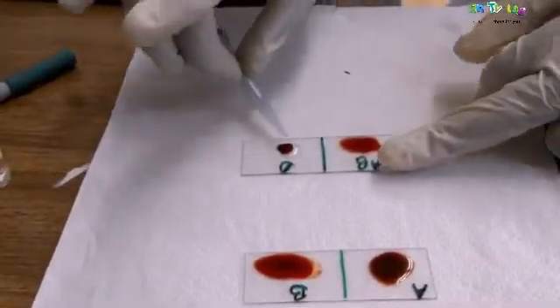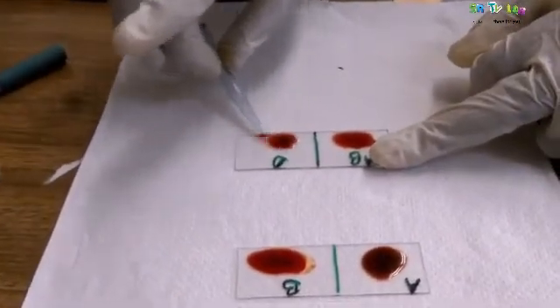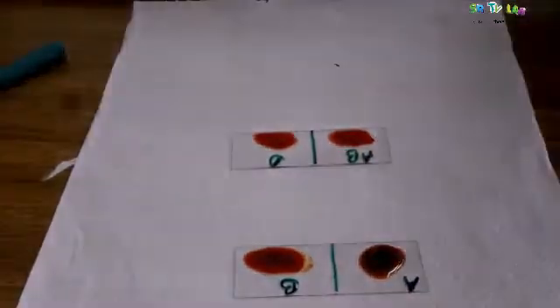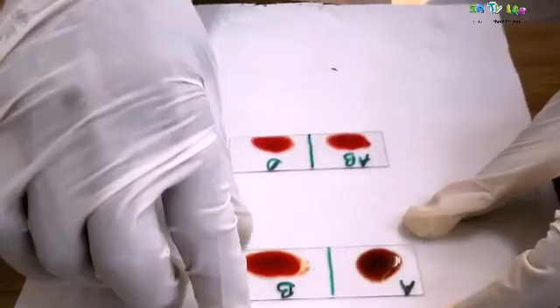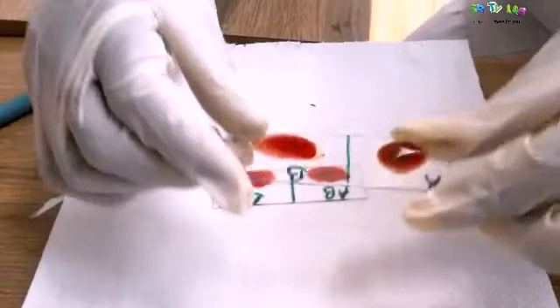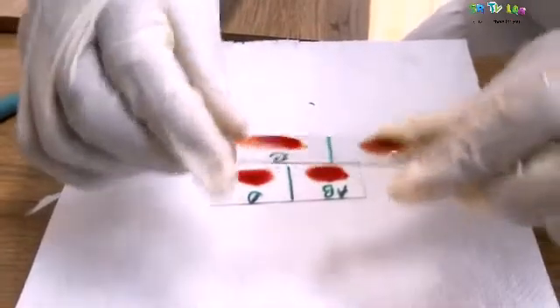Also, you can see at AB, there is a change as well. Let's see at D. Wow, even at D there is change. So let's see clearly. You see, at A there is no change.